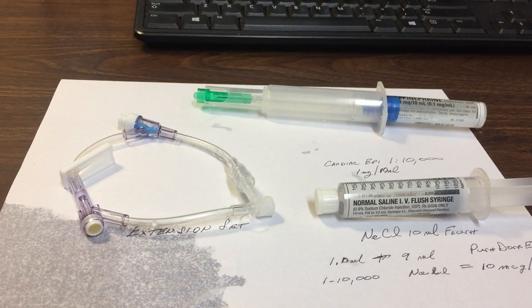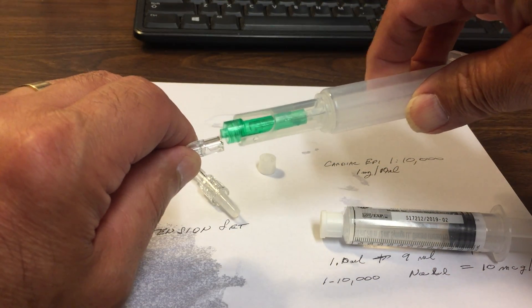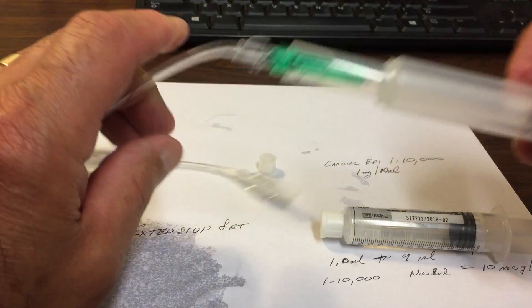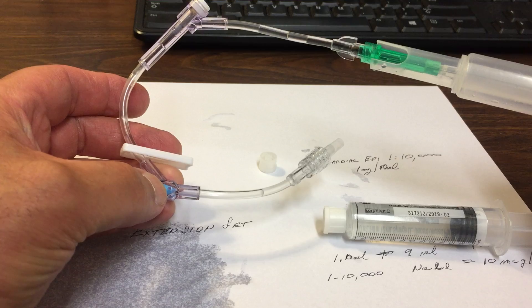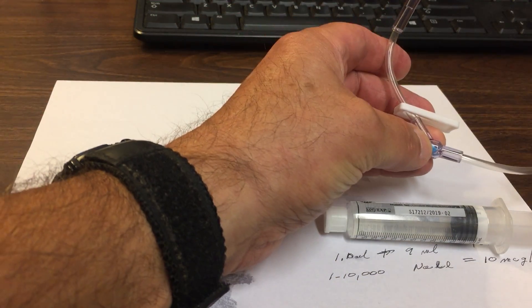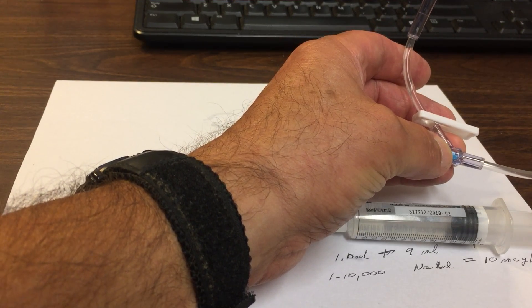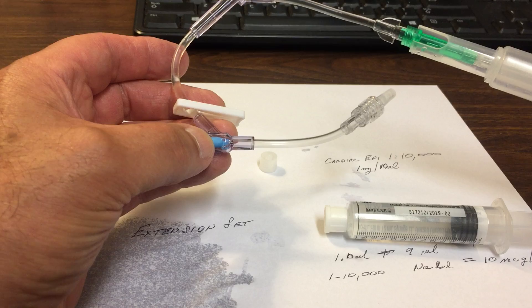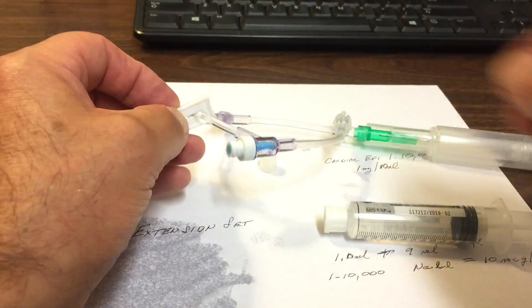What I'm going to do is take this end off and try to keep your caps. I'm going to push this and attach the 1 to 10,000 epinephrine. What I want to do is get this down — start it down and try to get the water over here. Just get this down to where it stops right at that port. That's where we're going to put the normal saline.